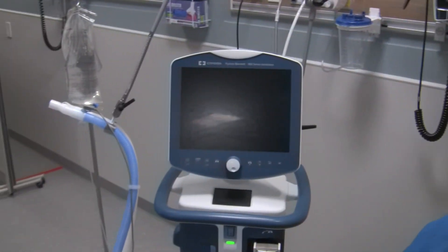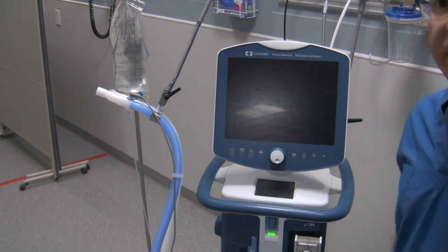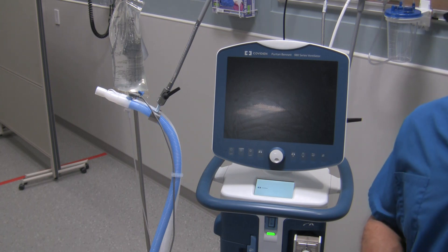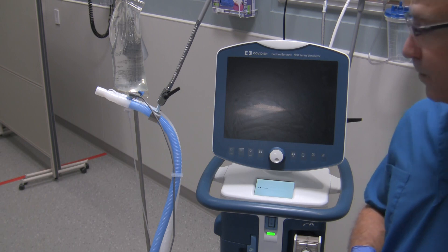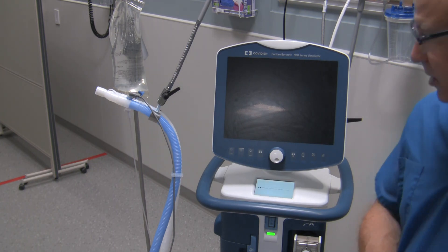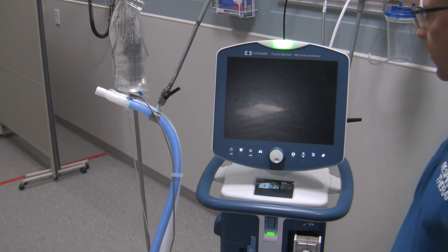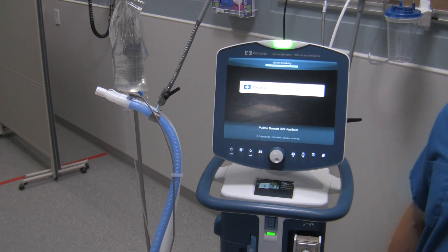Here's our PB980 ventilator. We're going to turn it on. The pre-use check has already been done on the ventilator so we don't have to worry about that. We've chosen to volume ventilate our patient — square waveform, appropriate tidal volume and respiratory rate. We're assuming the patient is normal: no ventilatory impairment, young patient, 70 kilos, male, ideal body weight. Somebody else is providing ventilation for the patient at this time.